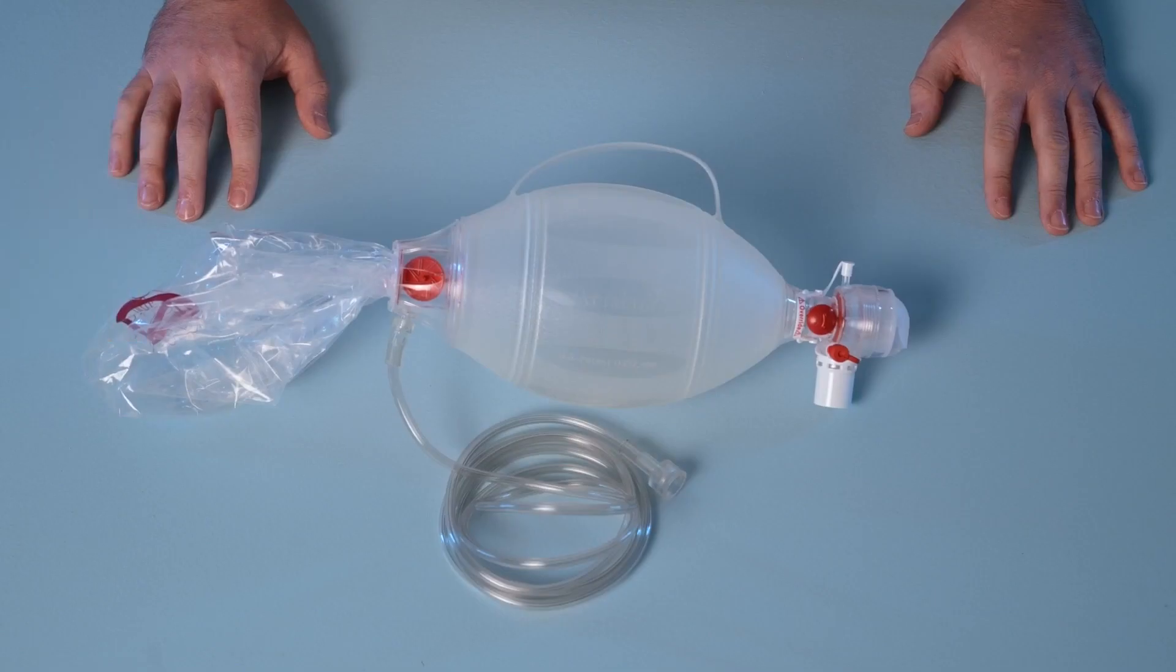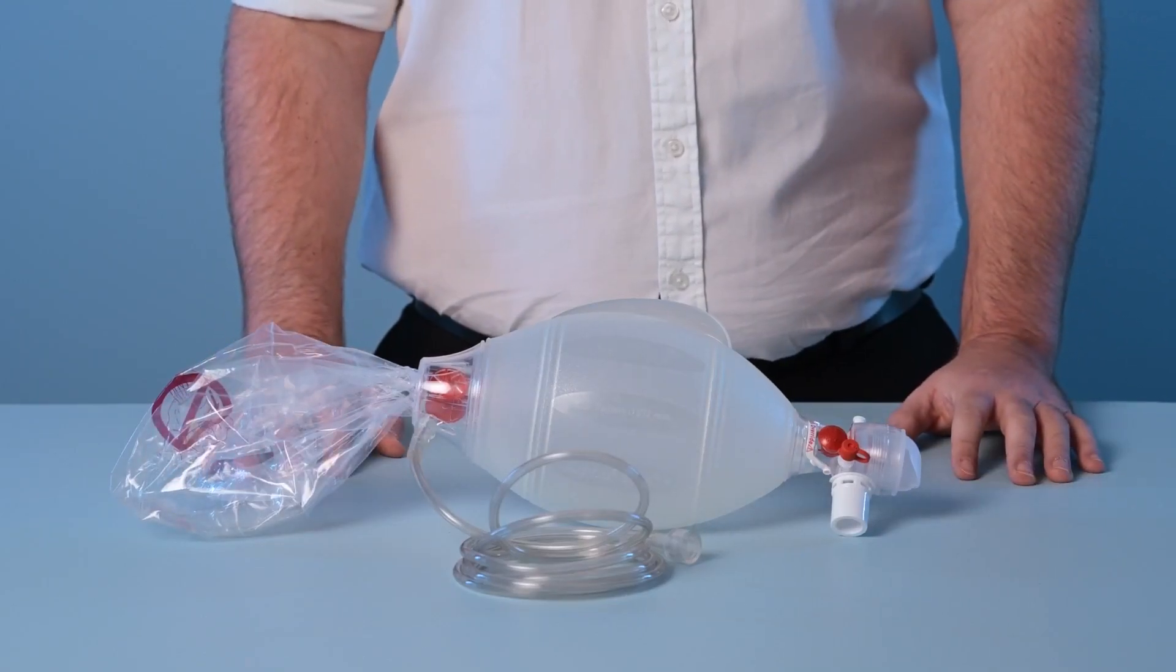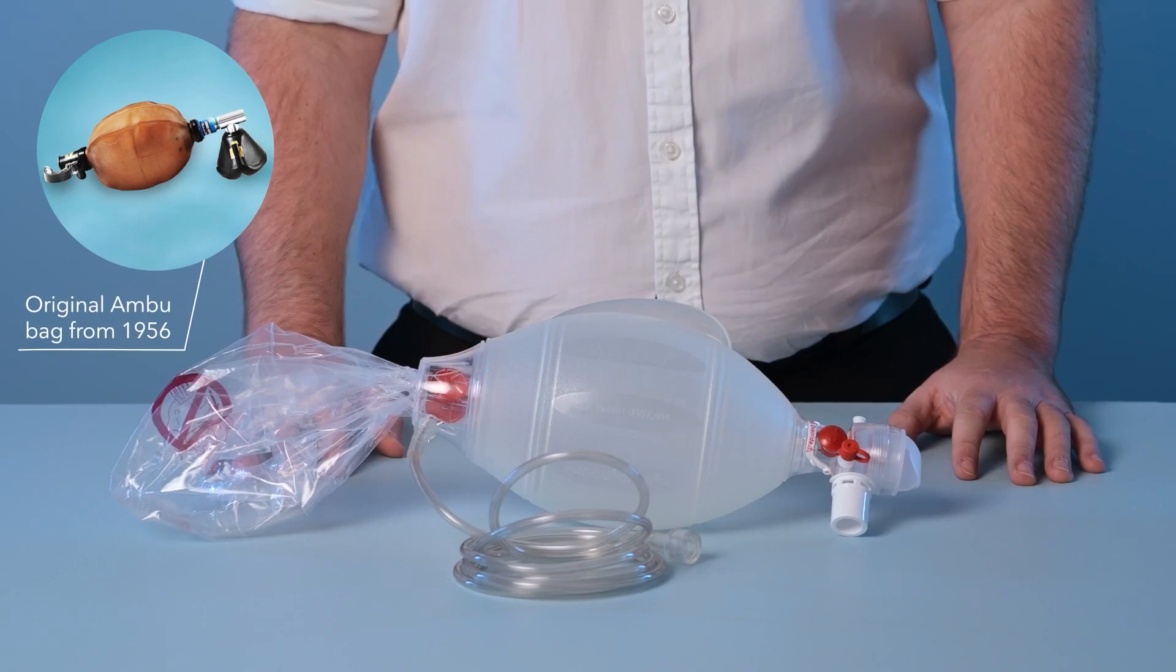Resuscitators have been at the heart of the Ambu product portfolio for over 65 years, stretching back to the release of the original Ambu bag in 1956.